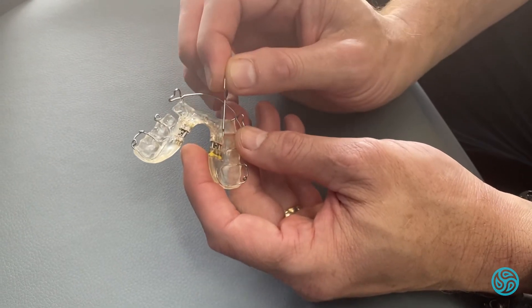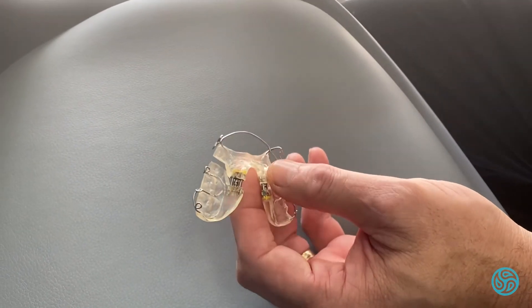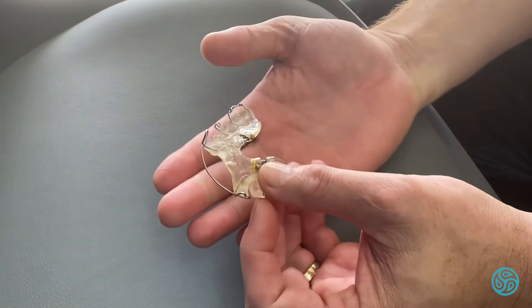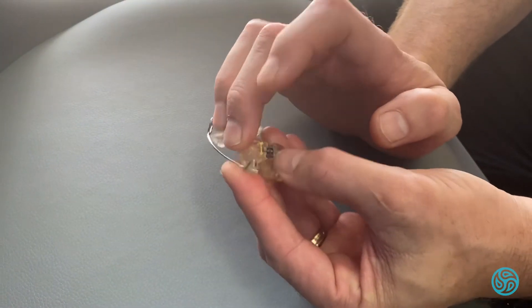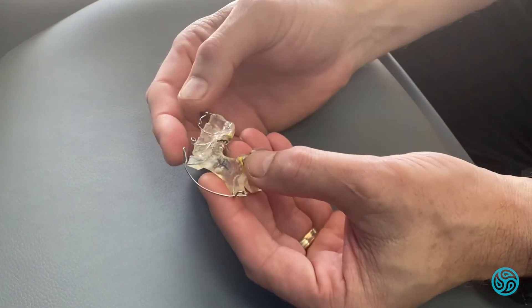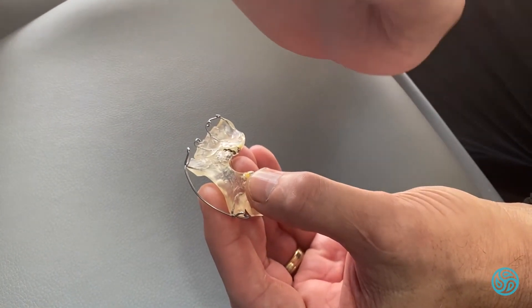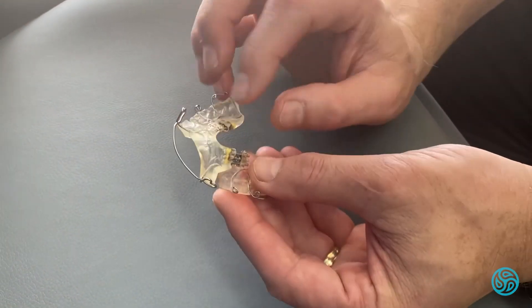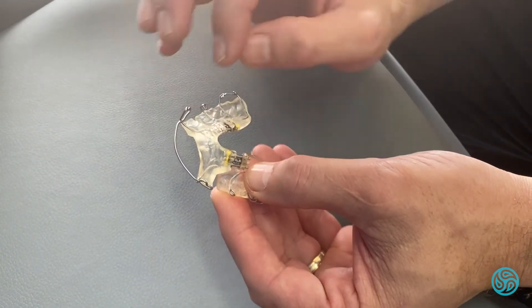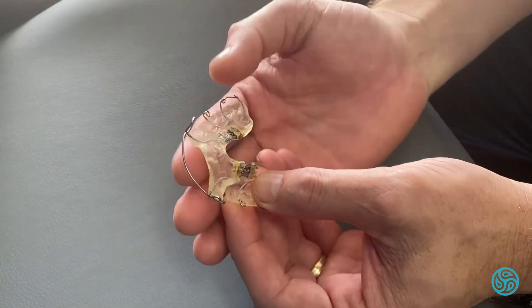If we see that we're behind or further forward, we just want to make these equal and see if they still fit. If we turn it too fast, this plane here that needs to sit in the roof of the mouth will slide down, and these little attachments won't click onto the teeth and we won't get that pressure forward. If you've made an uneven mistake, you can try to win that back a little bit, but be certain it's fully sitting inside the roof of the mouth and still active.